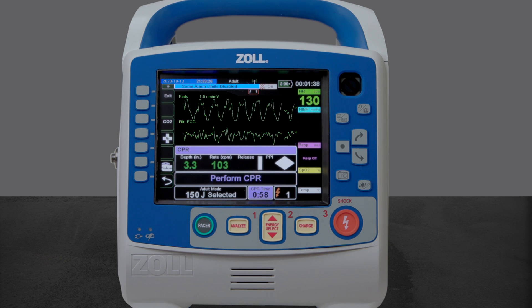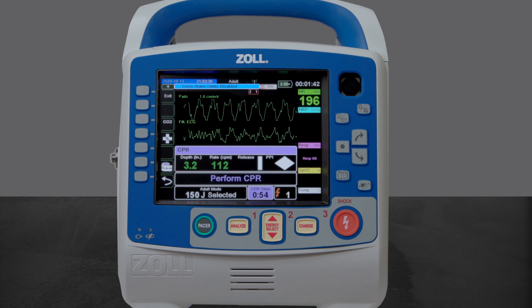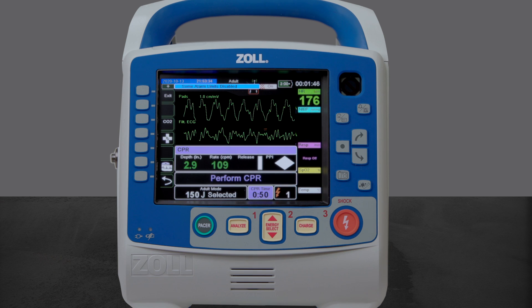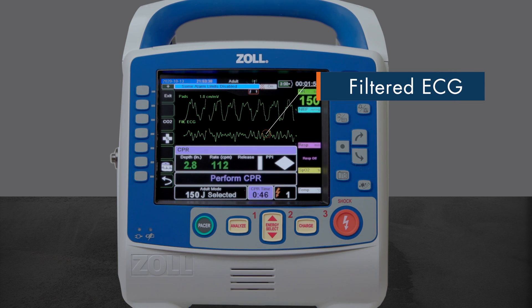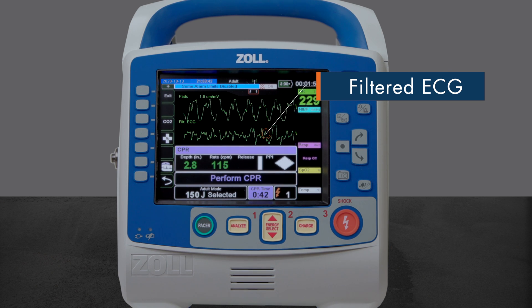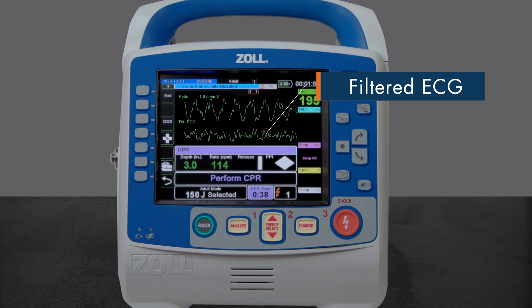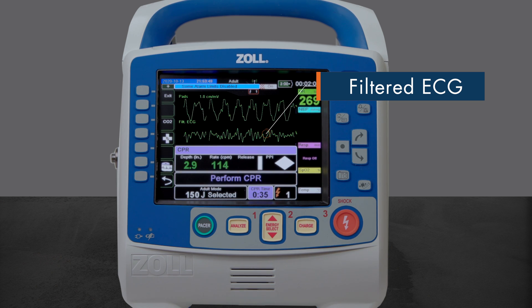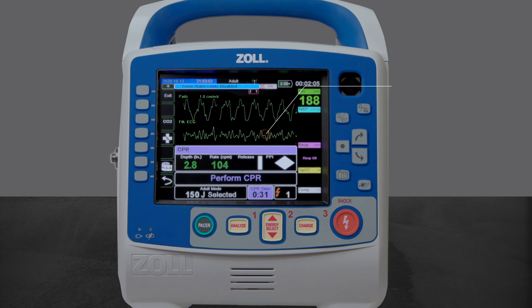With rapid shock enabled and compatible CPR pads connected, the analysis algorithm will begin during the CPR period. Advanced filtering algorithms work to remove artifact typically caused by chest compressions and can shorten the time to a shock-no-shock decision in as little as 3 to 6 seconds. This feature is available only when operating in either AED or rescue protocol modes of operation.